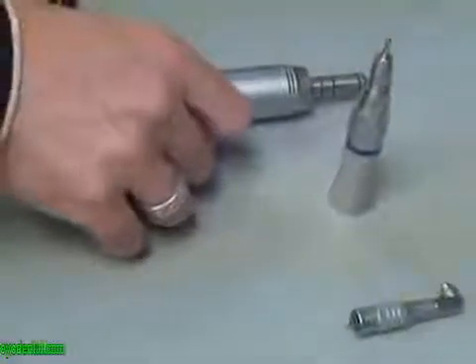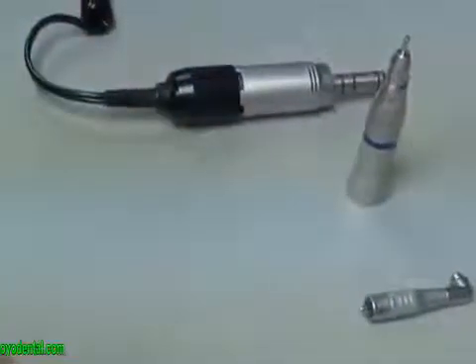This is a demonstration of how to assemble your Bonnart polisher. You'll notice that the polisher comes in three pieces.